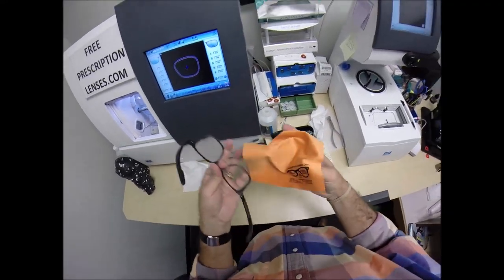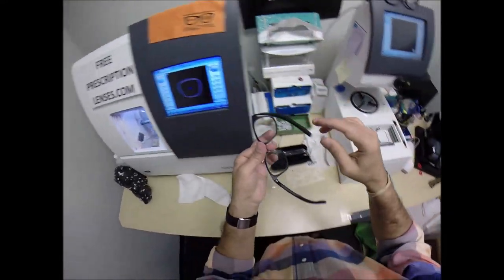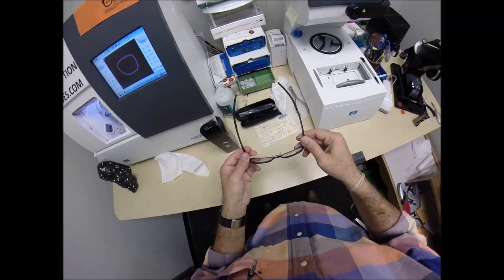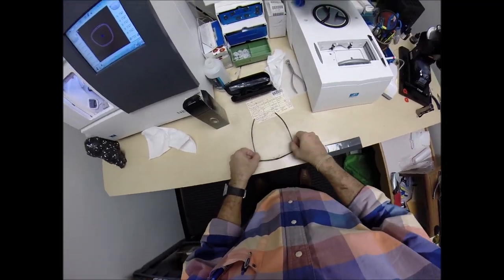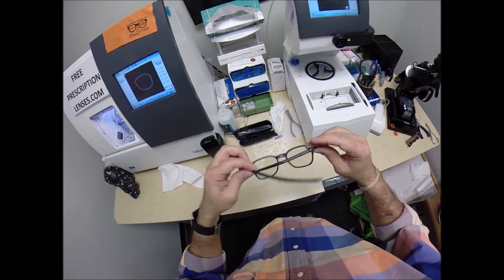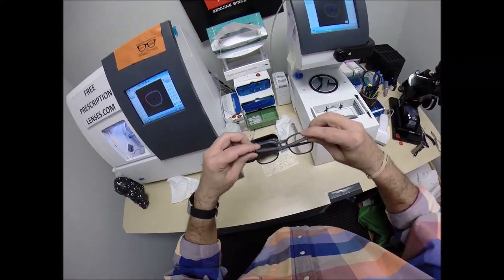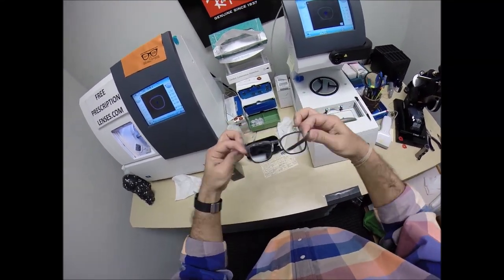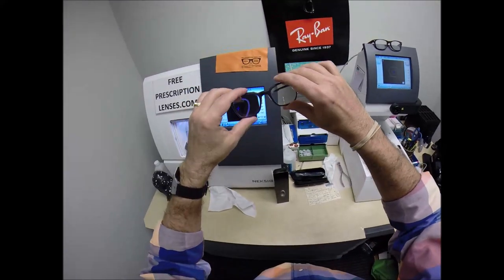But as I was mentioning, just stop by your local place. 99% of all optical shops will do free adjustments if you ask them. But turn it upside down, press, and there's no wobble. I close each temple to make sure they overlap. And they do. And then neither temple is askew like that.